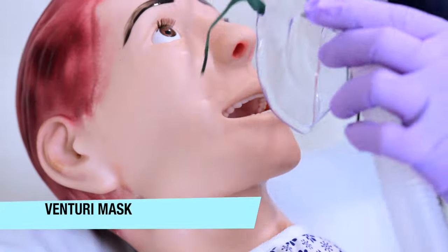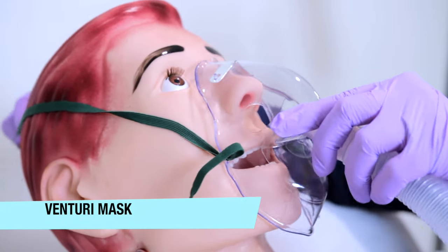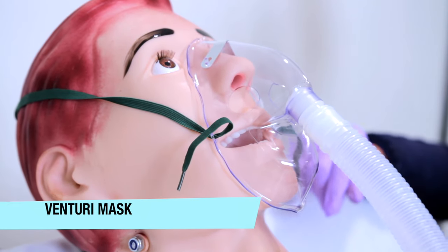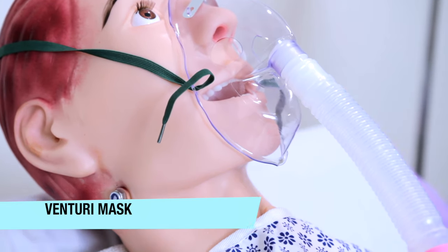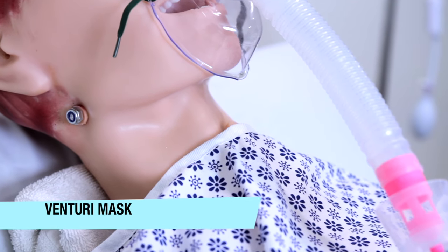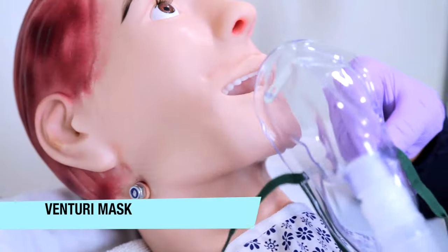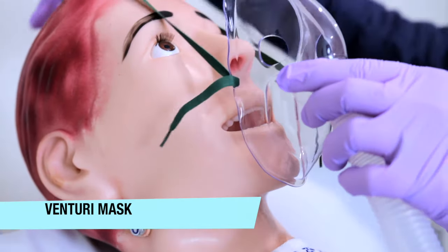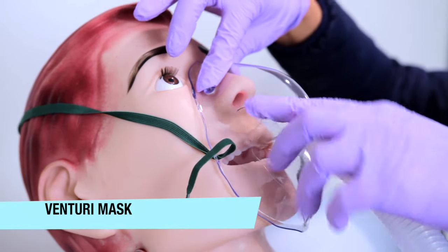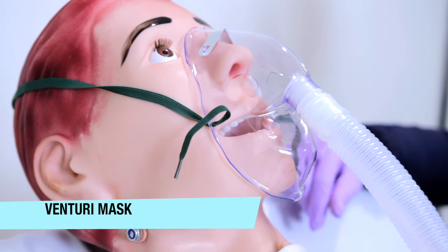This is a venturi mask. With a venturi mask, always ensure that the flow rate of oxygen is set at the prescribed amount specified on the venturi valve for the desired FiO2. This delivery of oxygen is precise because it delivers a high accurate amount of oxygen through a fixed colored orifice set at a specific amount listed on the fixed orifice per manufacturer guidelines. Some reasons for use are for your patients with CO2 retention, such as COPD.